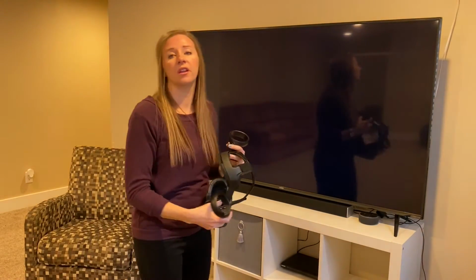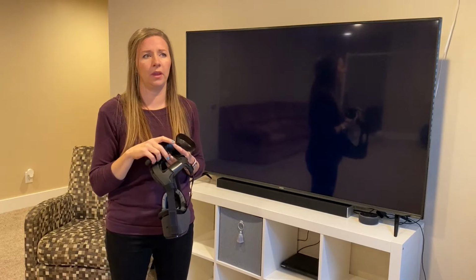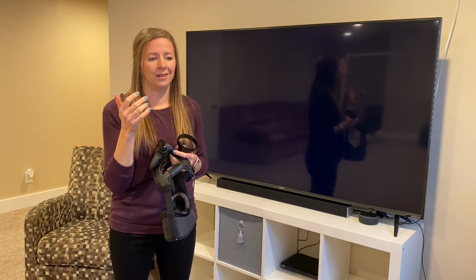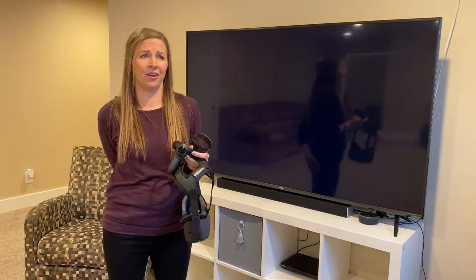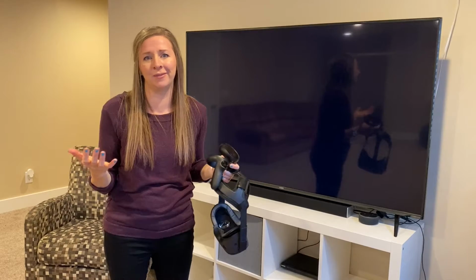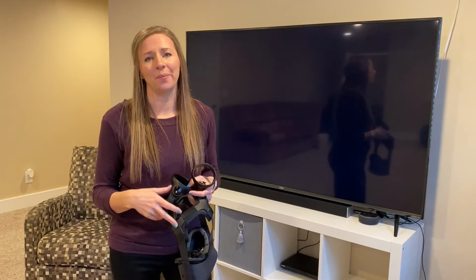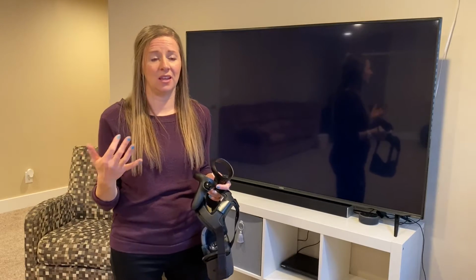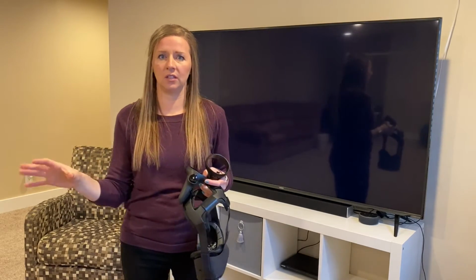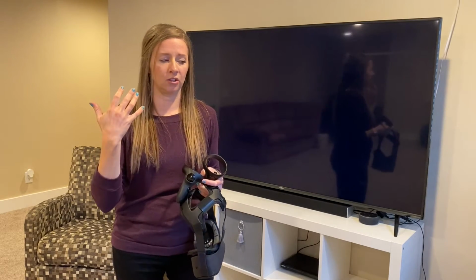So generally speaking, there are a few more games than that. We only had 5, and there are 9. So my optometrist must have just opted for me to do those specific ones, which is totally fine. And that's the thing that's great, is that he can change that from week to week. He can see, okay, she's doing really good on these ones, I'm going to switch it over to these ones, and mixing it up for my brain is actually really, really good.